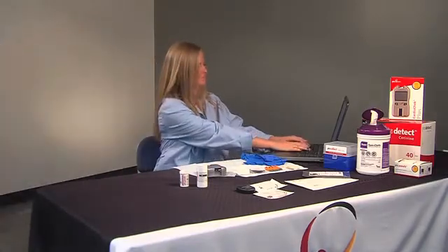Hi, I'm Emily with PTS Diagnostics. I'd like to talk to you about cleaning and disinfecting your CardioChek analyzer. We all know how important that is, so I'm going to show you the best way to do it so all your tests will be accurate and safe, and so you'll save time and keep your schedule on track.